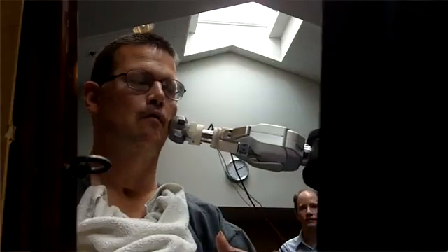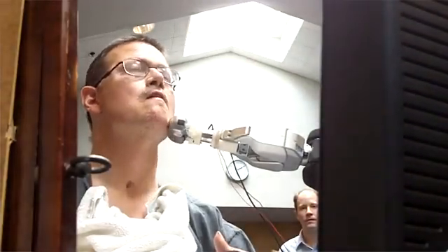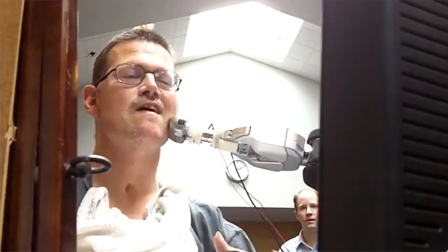Henry hates being shaved, so we tried letting him shave himself with the robot. He was successfully able to shave his cheek by moving the electric razor to his head and moving his head around, but we are actively working to let him do a more complete job.